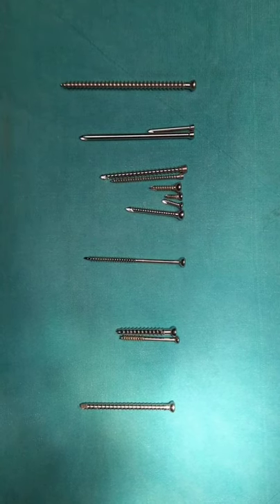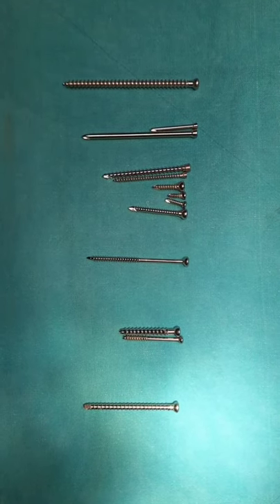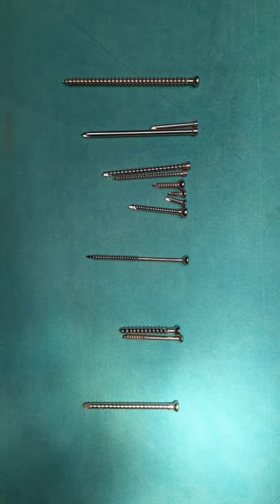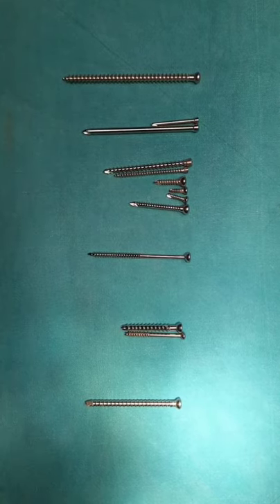Now, what is a screw? A screw is a device which converts rotational force into axial force. A screw is a simple device used to compress two objects together.